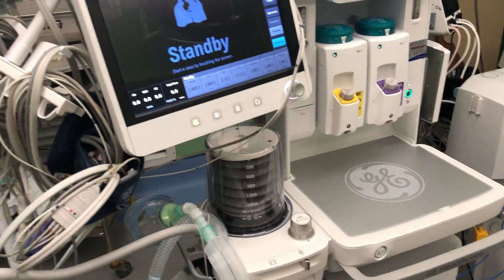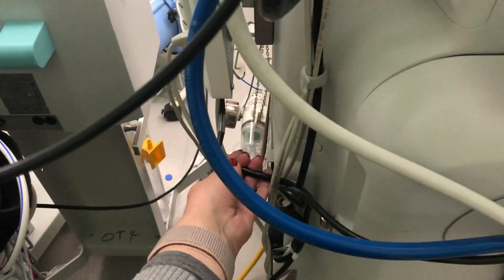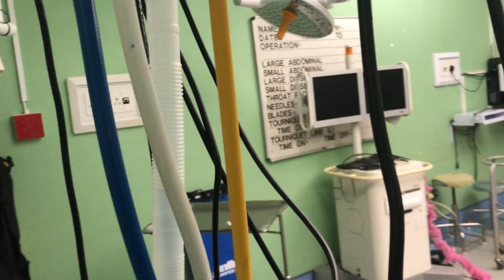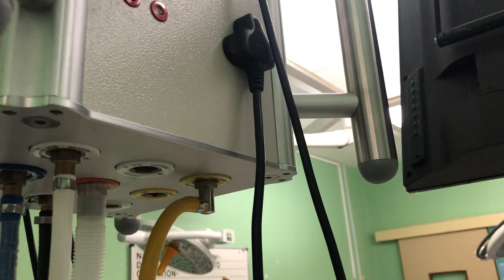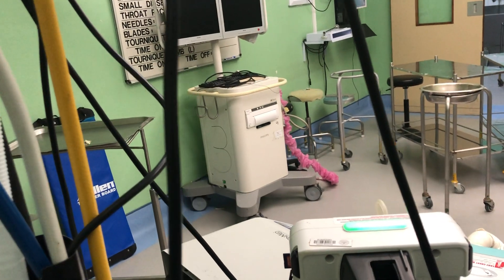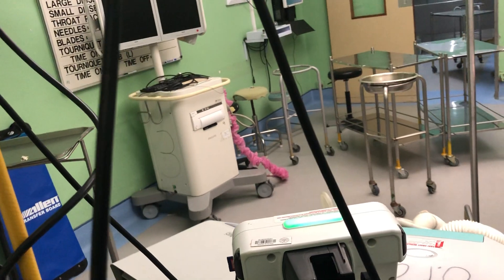There are things that must connect to the back of the machine. The machine needs power, so there's a big power cord that connects into the power plug. If the power fails, anesthetic machines all have backup batteries. In the morning when we check the machines, we should switch off the power to make sure the battery is charged and working.